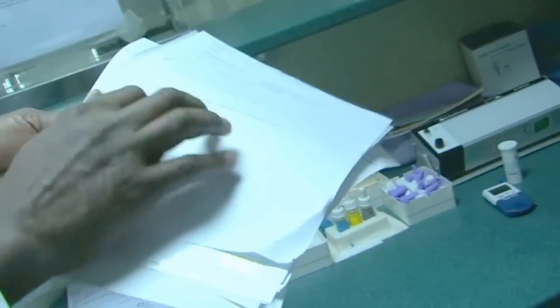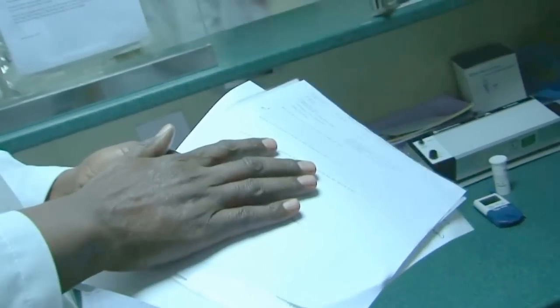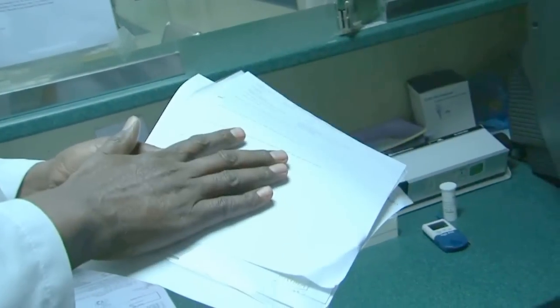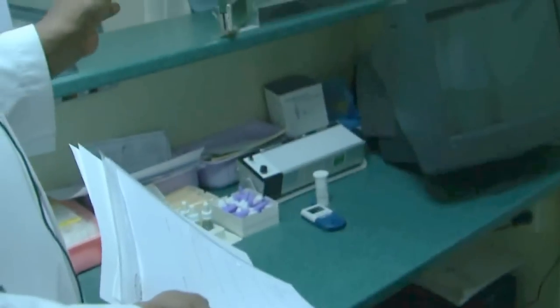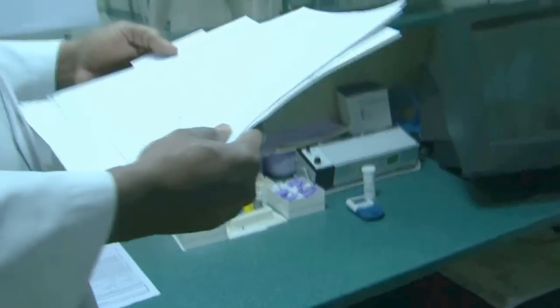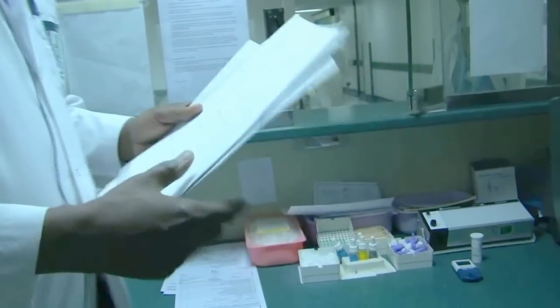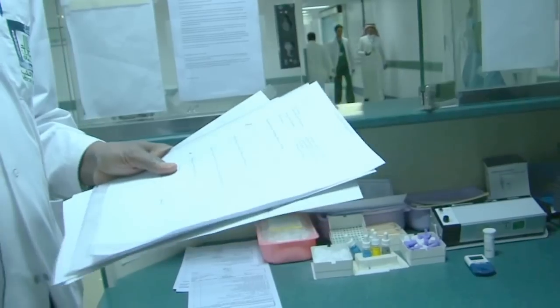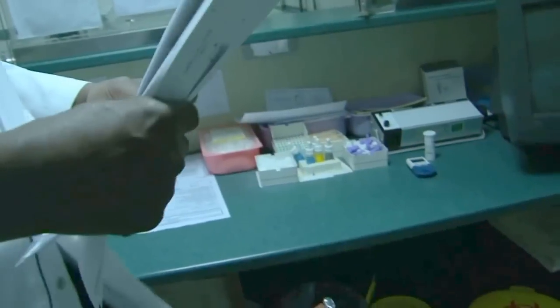And then what do you learn from this section? Have you learned anything more than you learned at the university, or similar? Anyway, at least we know how we are processing this in these places. Starting by filling these two questionnaires or forms, and then we do our donation. And then you comment on this, whether the place is good or not. And then we go to the other inside section where the processes for these tests are done, most of them, and we can show you some tests there.